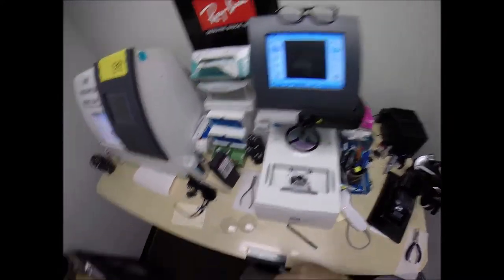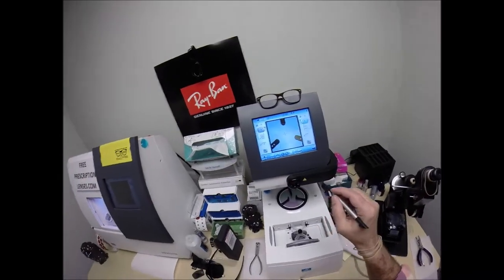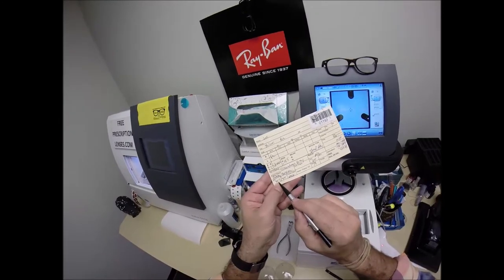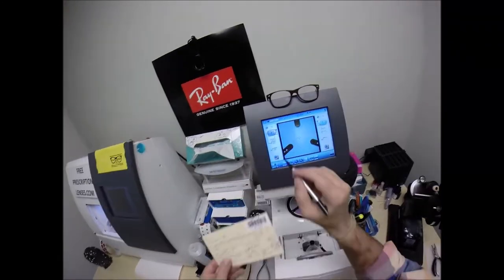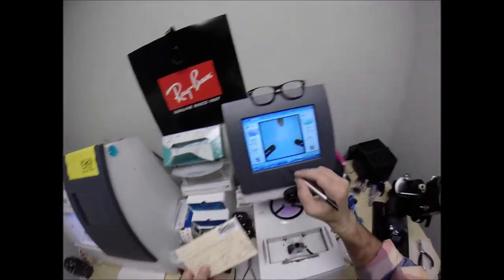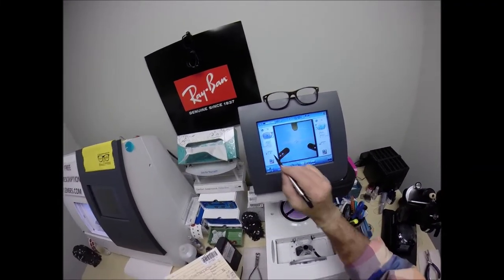My receipt has my federal ID tax number, so if you have vision insurance, health savings account, unused flex dollars, you will get reimbursed for this purchase. The computer starts at 32.5, which is the pupillary distance for your right eye. I want to raise the optical center up to where the seg height will begin at 19.5.